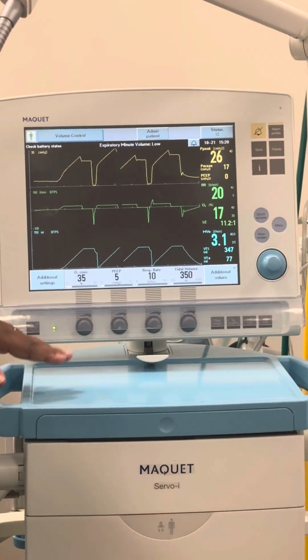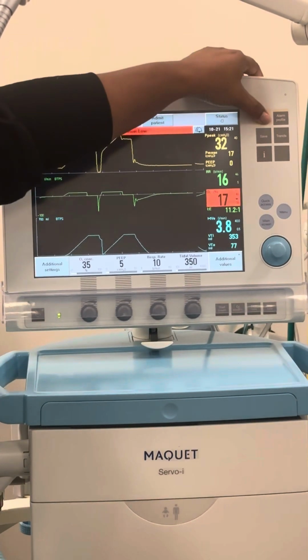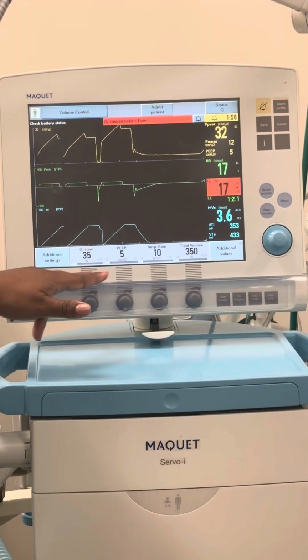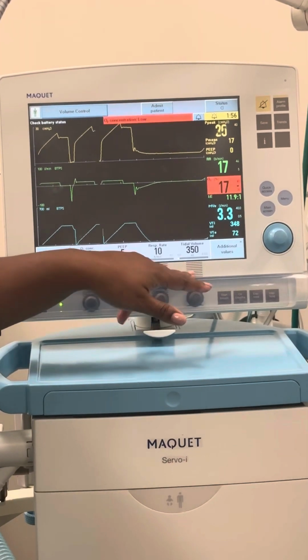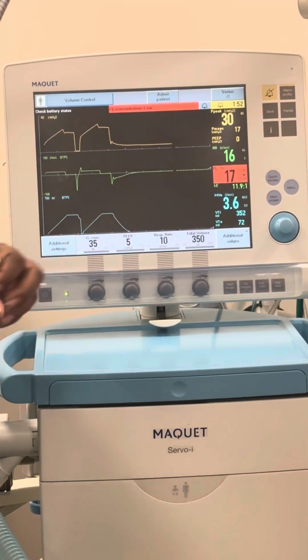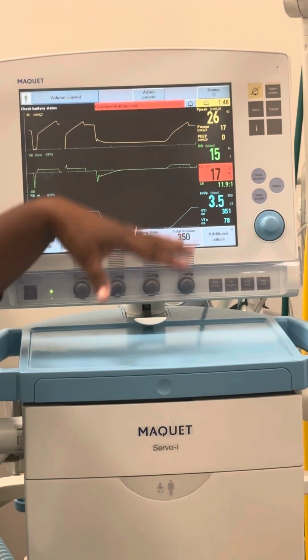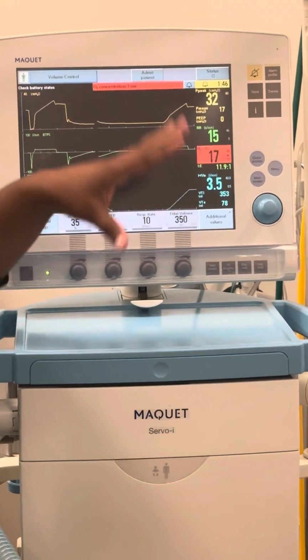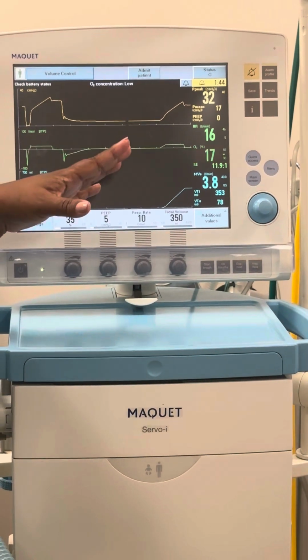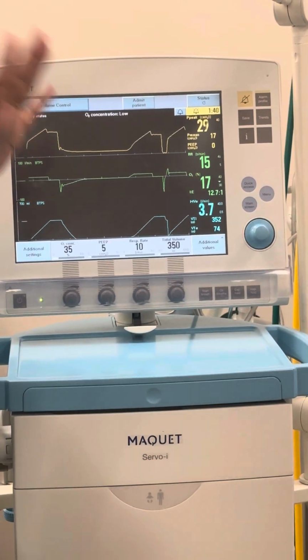All right, so basically you're going to come in on your settings. We have a setting of 35% FiO2, PEEP of 5, respiratory rate 10, tidal volume 350. We did all of our assessment and monitoring from our scan in the chart: patient, ECG, ventilator. We got our plateaus, our compliance, our resistance. We did everything in monitoring. Everybody's good to that point? We did our alarms. We did the backup apnea. All that stuff is done.